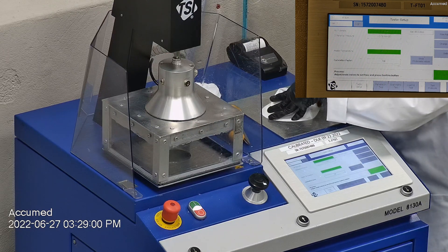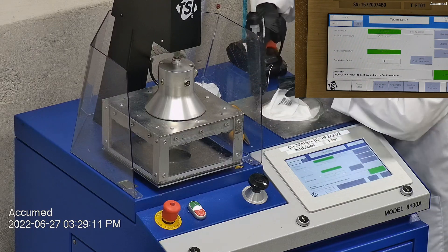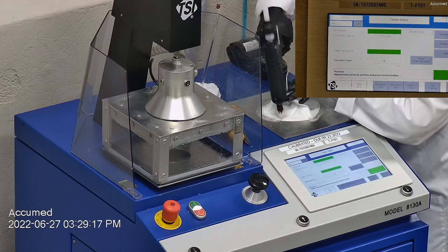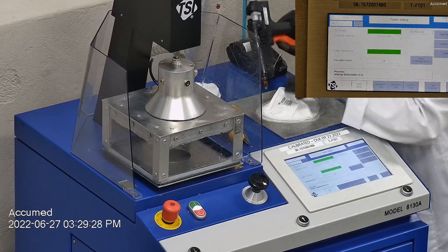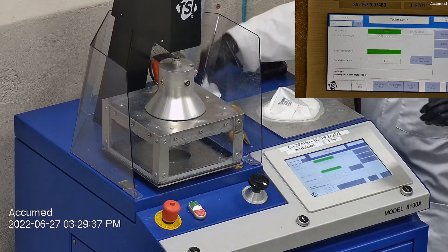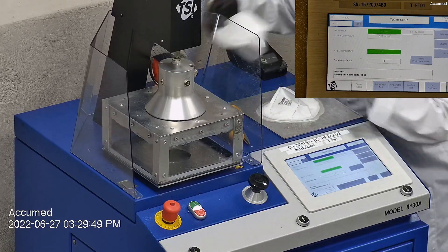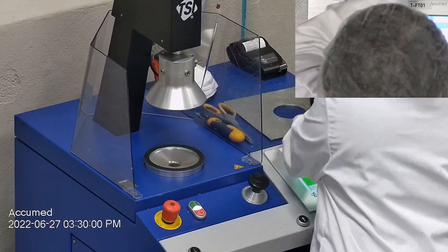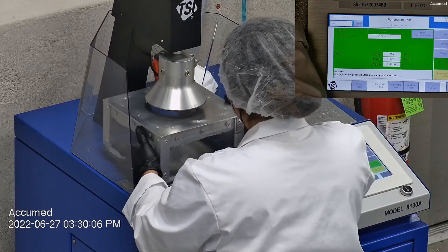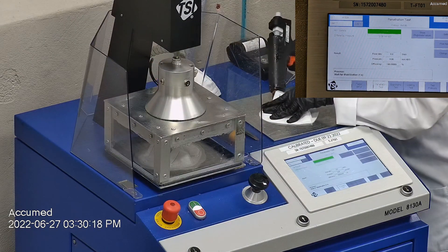When applying the hot glue, we make sure there are no holes or leakage around the seal to ensure accurate results. The testing plate is then attached to the frame and the box is placed under the TSI filter holder for testing. The results are displayed on the TSI monitor. F stands for airflow rate, which we test at 85 liters per minute. R is for resistance, also referred to as pressure drop, which correlates with breathability — the lower the number, the more comfortable and breathable the mask is. E stands for filtration efficiency percentage.